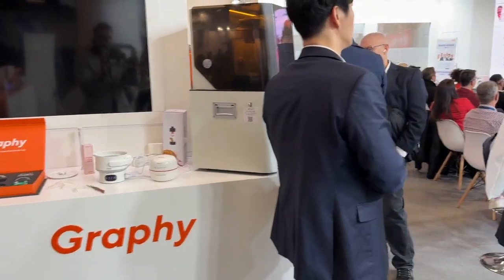Well hello again. I'm here at a booth that says Graphy, and they had aligners. I said, so what? What's the big deal about this aligner? The answer is this has been 3D printed — and this is Simon Kim, who invented the whole process. He's the scientist, the chemist, a brilliant man. He's actually written a clinical research paper that 123 people have read. It's an amazing process. So let's talk about 3D printing and then talk about this aligner.